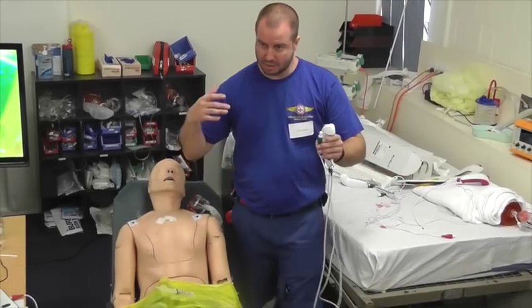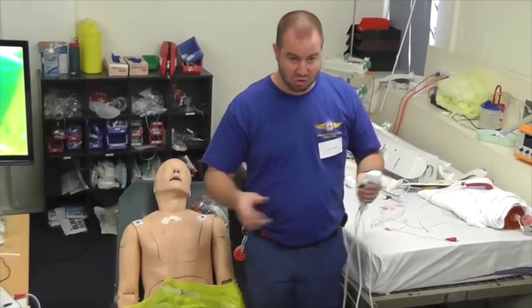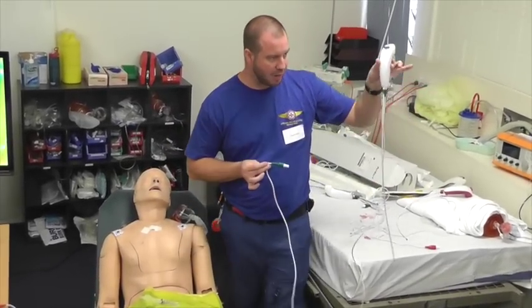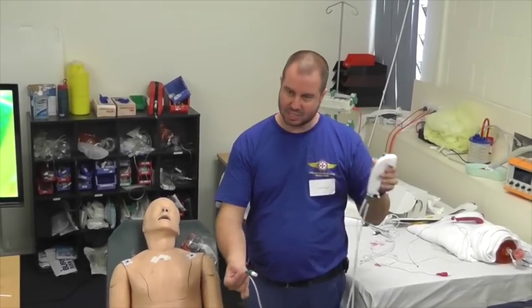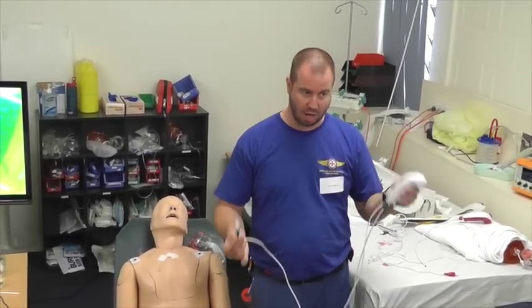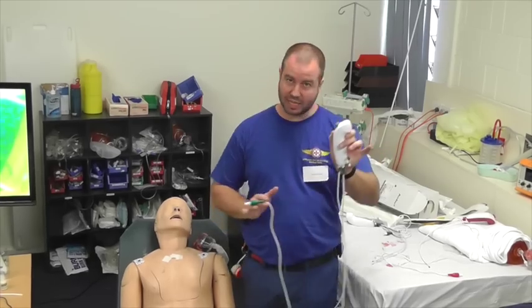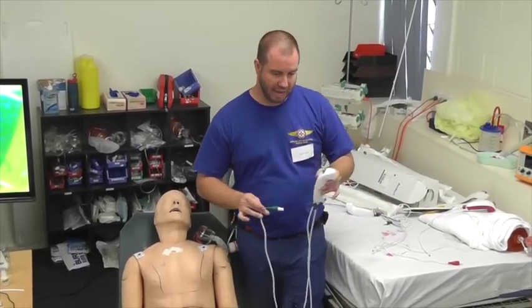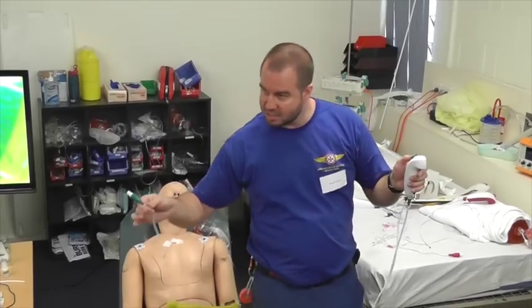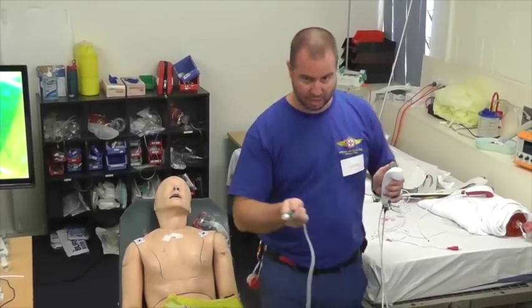The way that they make them disposable is that there's a lifetime expiry chip in here of about 6 to 8 hours. So when you plug it in, you've got 6 to 8 hours to let it work, and then it will die. There's 2 of these in your packs, so if the one doesn't work, the second one will get you through it. And if you're on scene for longer than 8 hours, you've got to question your scene time, okay?